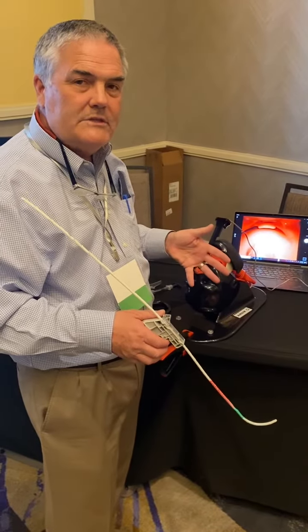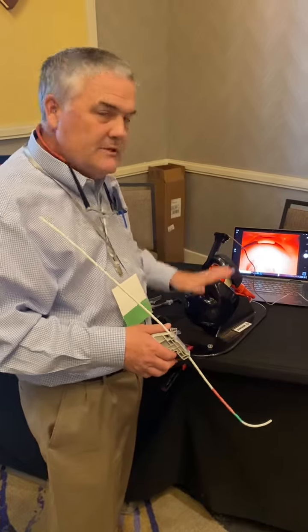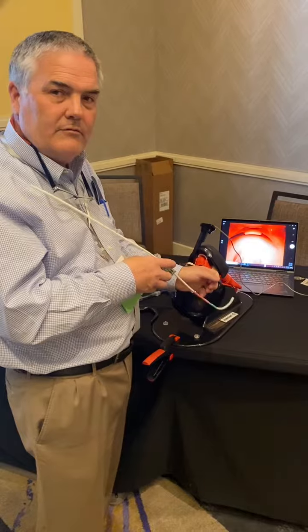I'm going to do the top three mistakes people make the first time they're using the device. Number one is have them put the table down so that they're not working up here and they're working comfortably here.